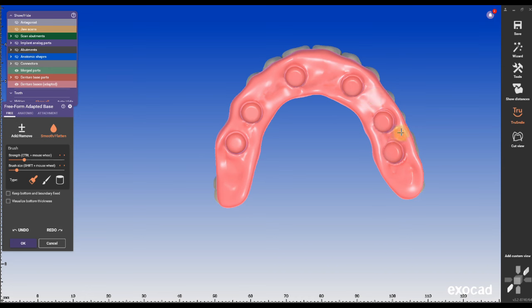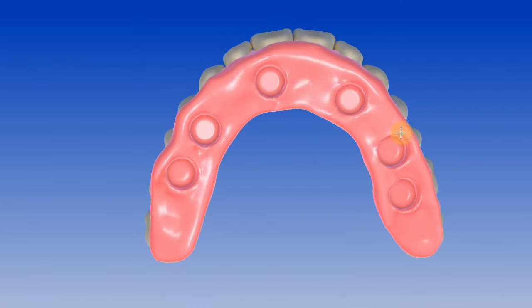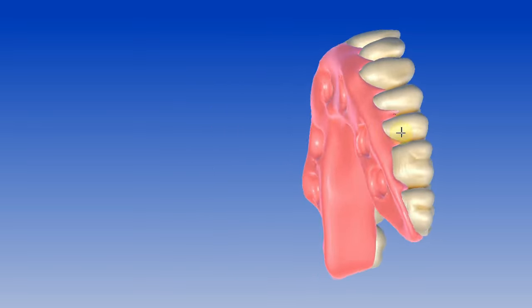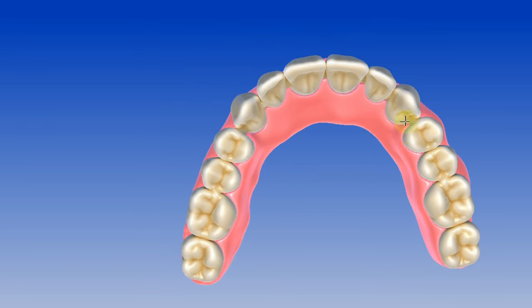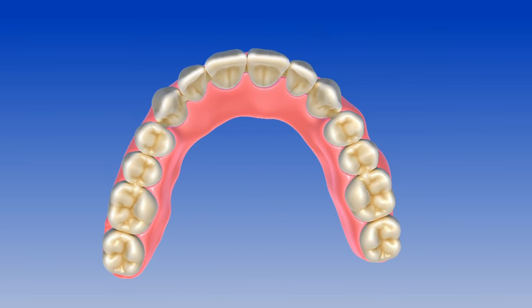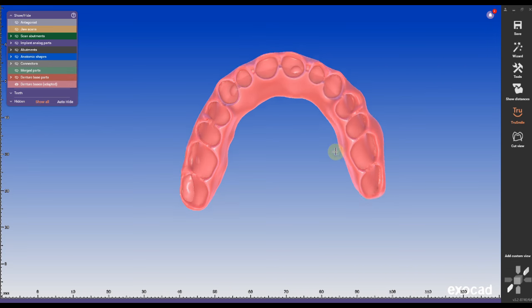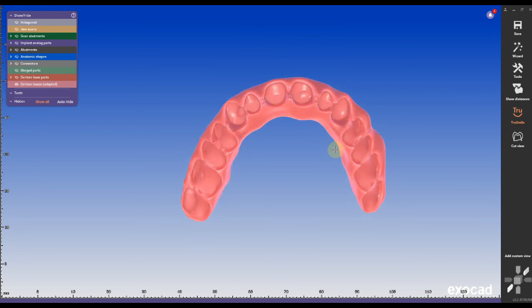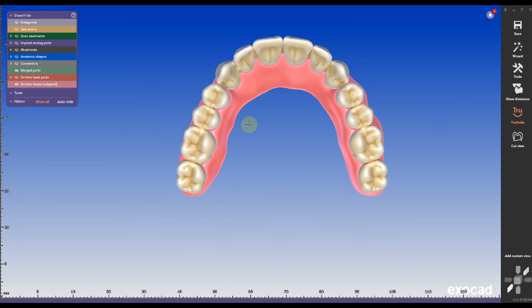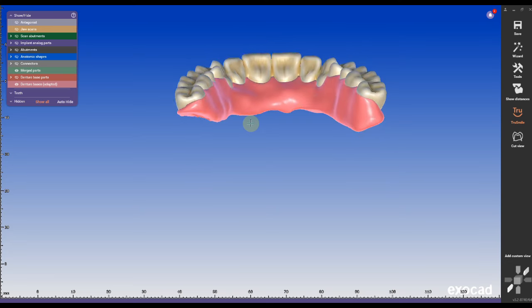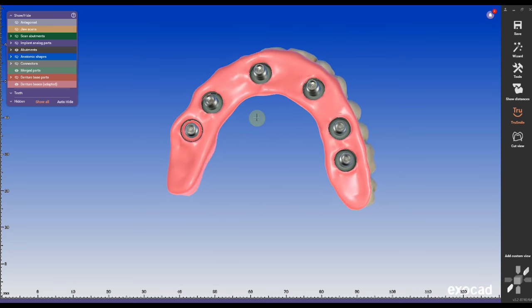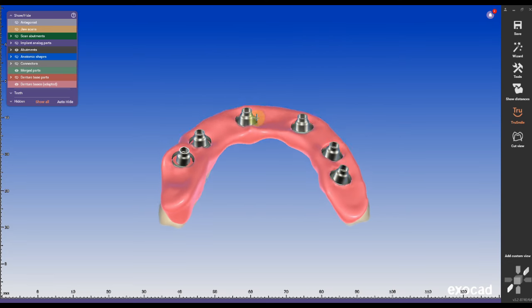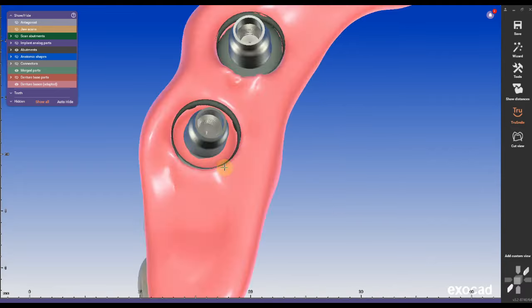especially when you send the restoration out to a clinician to pick up the housing. The design outcome contains two parts: the pink base with spaces for the teeth and the teeth connected into one piece, which can be milled or also printed. All of this gets glued together later on with some special material.